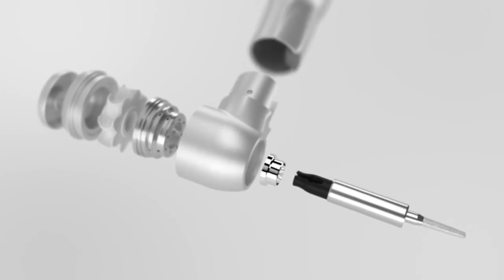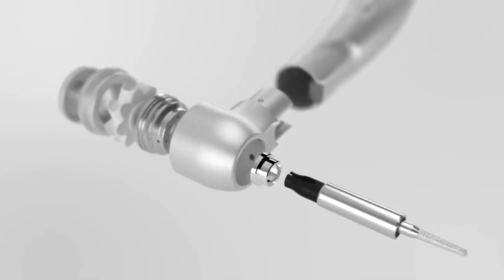The other type of dental drill, the electric drill, is not quite as powerful, but still works great and has its own benefits.